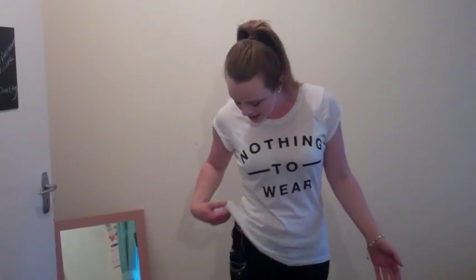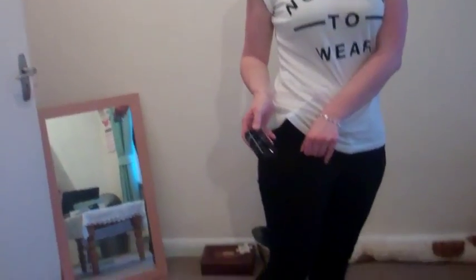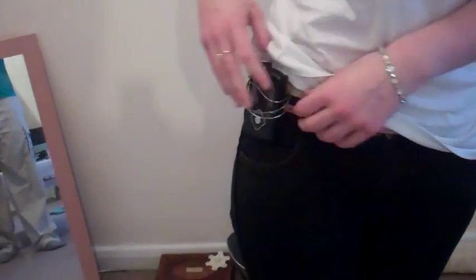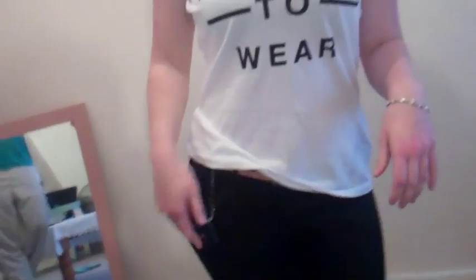Normally, if I'm just out with my friends like I was today, then I just have jeans and a t-shirt on, and I just stick my pump — because it has a clip — I just stick it onto the side, onto my pocket, or clip it here. It depends on whether you want to hide it. I don't really care about hiding it, so I just normally stick it onto my pocket. And then I can just bolus on the go, check my glucose levels, adjust my basal, whatever I need to do.